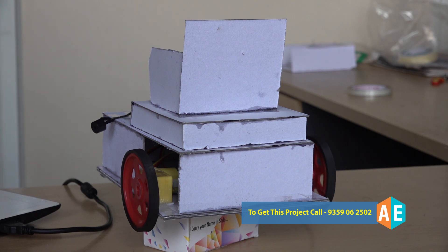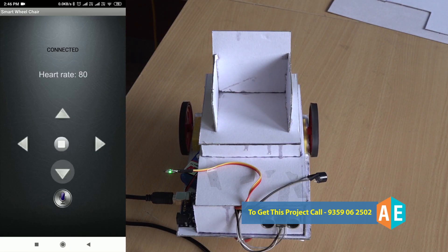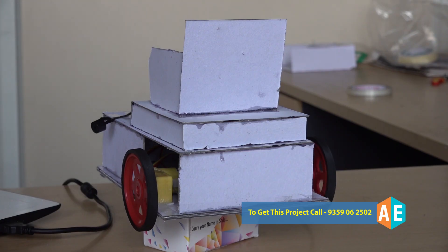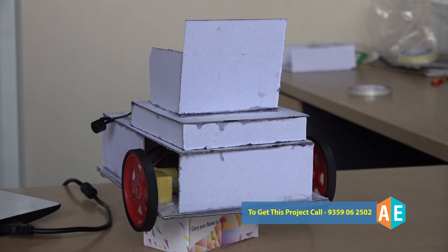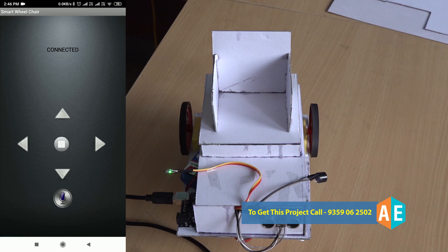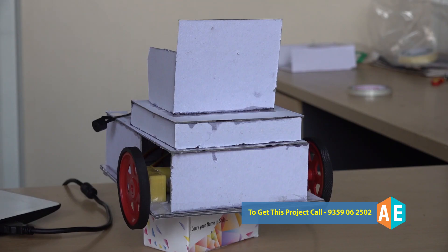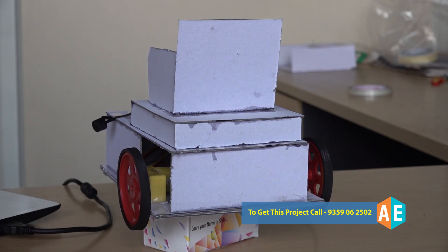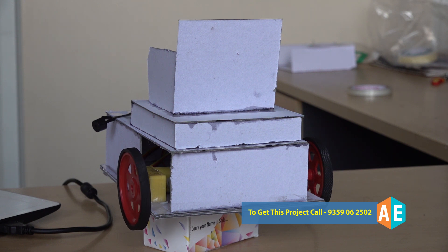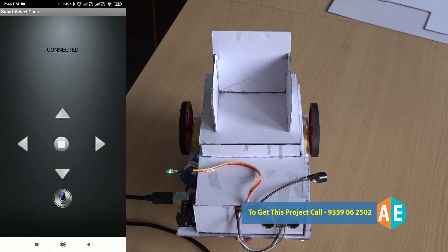Now I'm pressing the backward button. As you can see, the wheels are rotating in the opposite direction. Now I'm taking a right turn. When taking the right turn, the right motor of the wheelchair is stopped and the left motor is moving so that it will turn right.